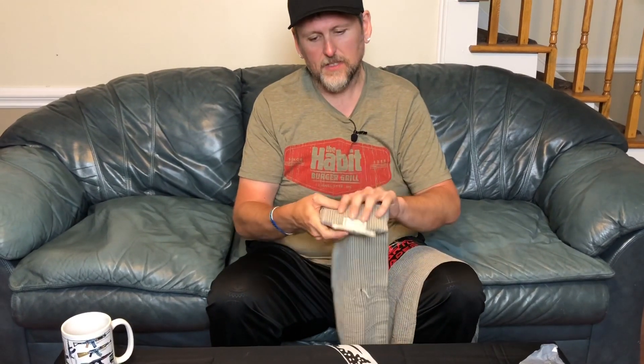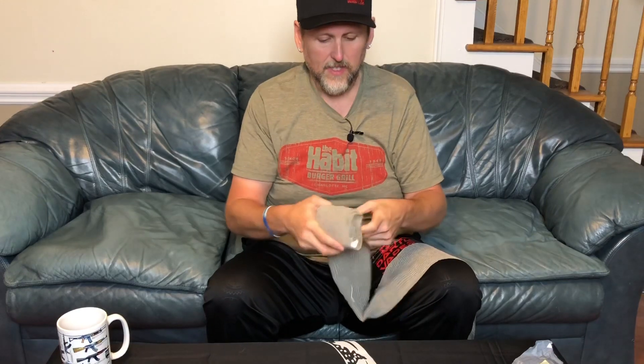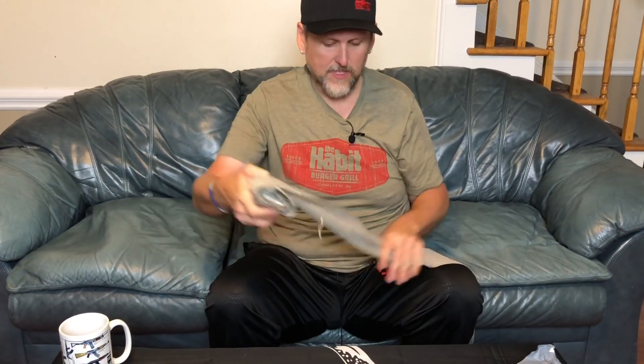These have a lot of usages and they're under ten dollars. I would carry one wherever I go in case you run into challenges. The reason they're called Israeli bandages is that the IDF — the Israeli military — carried these and kind of made them famous. It could also be a makeshift bandage for a knee sprain or ankle sprain. Obviously that's not its intended purpose; you can buy a cheaper ace bandage, but if you just had this one item you can see all the different uses.